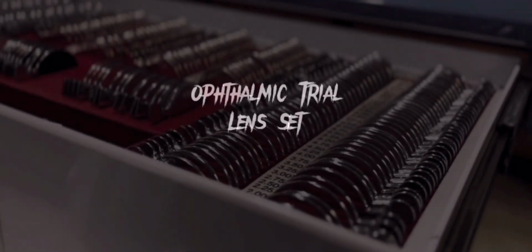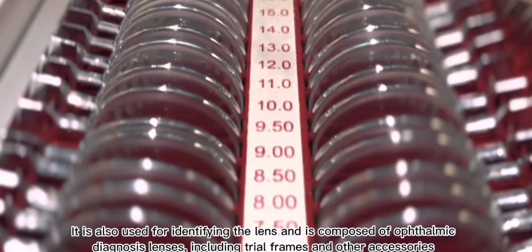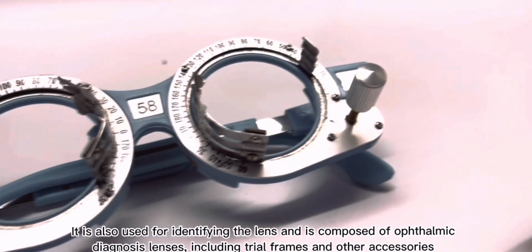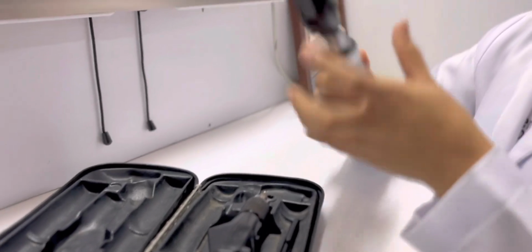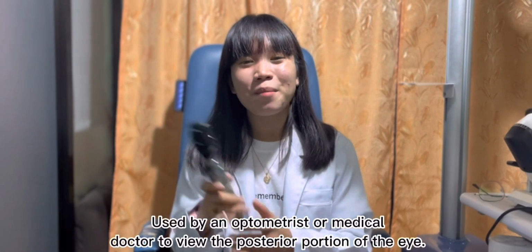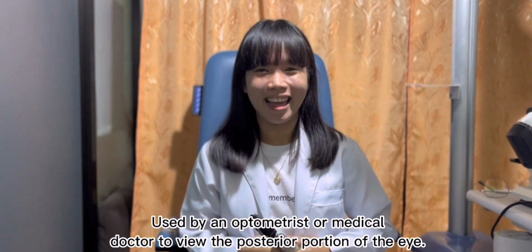Ophthalmic trial lens set. It is a primary instrument used for objective and subjective refraction. It is also used for identifying the lens and is composed of ophthalmic diagnosis lenses, including trial frames and other accessories. Direct ophthalmoscope. Used by an optometrist or medical doctors to see the posterior portion of the eye.